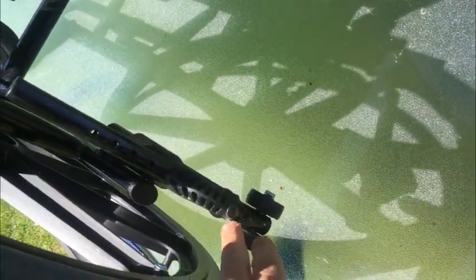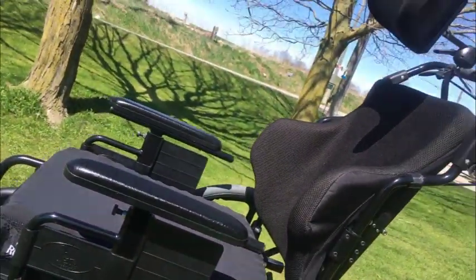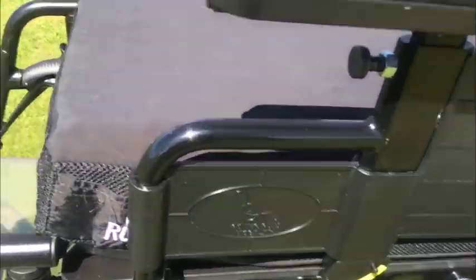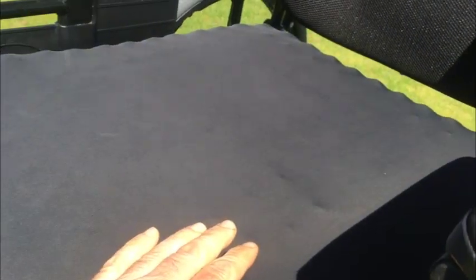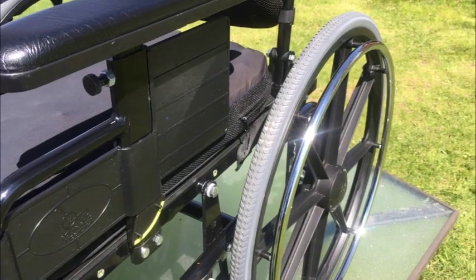The anti-tip features are here and you can extend them as you see fit, as well as the seat belt. It's a great chair. I'm going to post higher-quality photos alongside this video. You're going to be on Kijiji looking at a number of options, and to be honest, this is going to be your best option — it has the finest ad built in conjunction with the photos and the video.